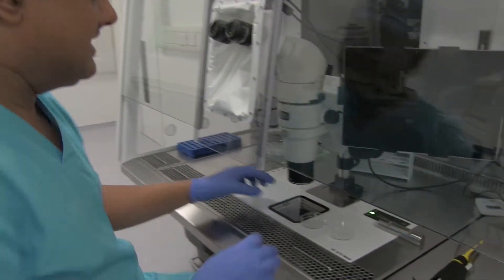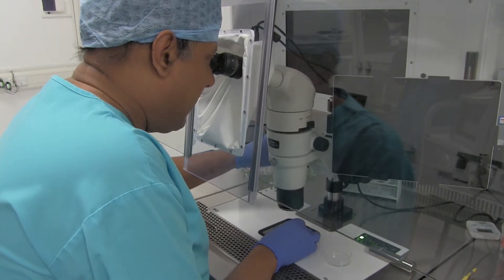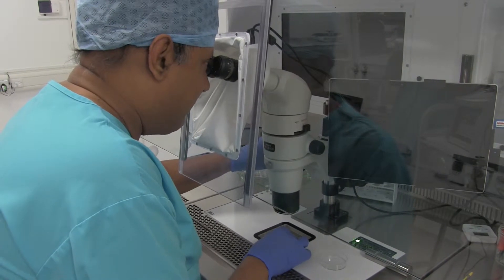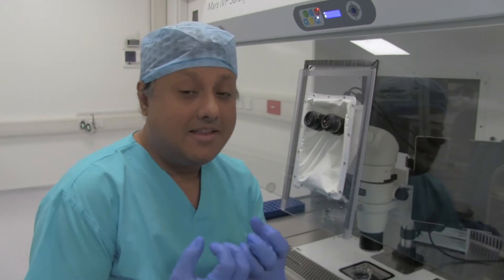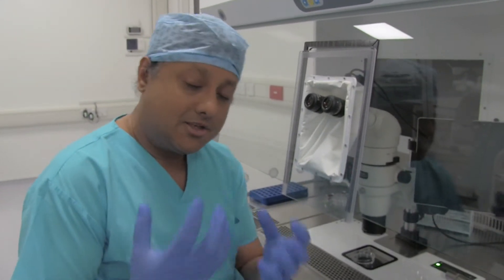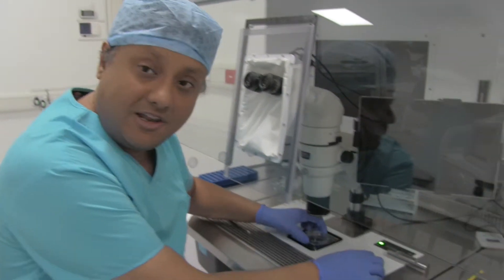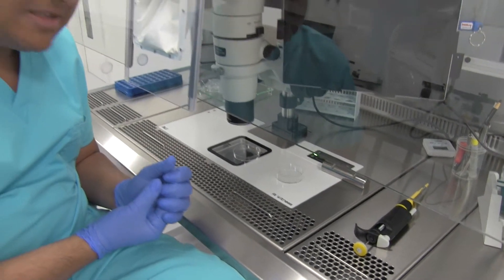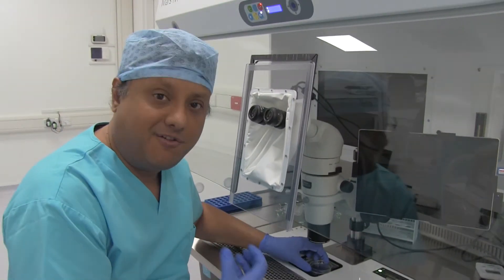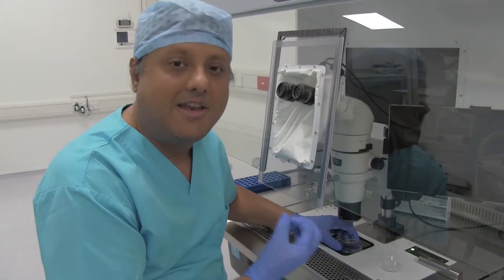The embryologist would then scan the follicular fluid under the microscope, trying to identify the health of the granulosa cells and potentially the cumulus cells that may contain the egg. We all know that the egg is surrounded by the cumulus, so what we are looking for in the follicular fluid is the presence of the egg. The egg will be surrounded by a lot of cumulus cells, and in the centre of that cumulus mass you should find an egg.